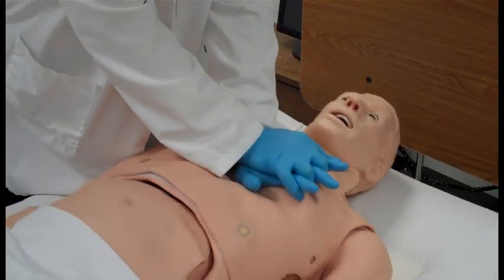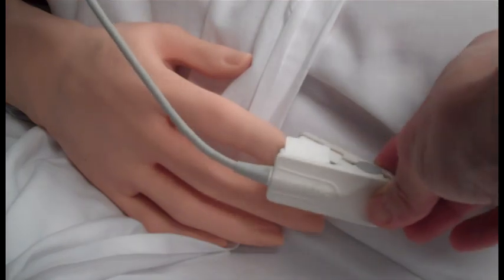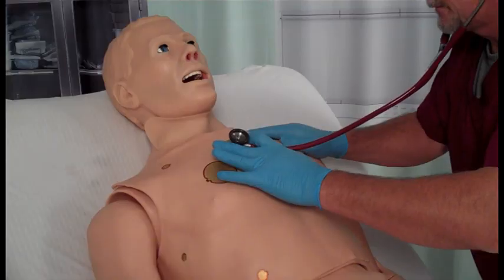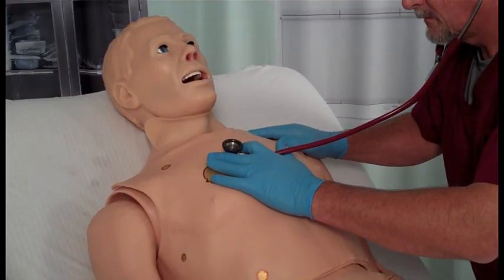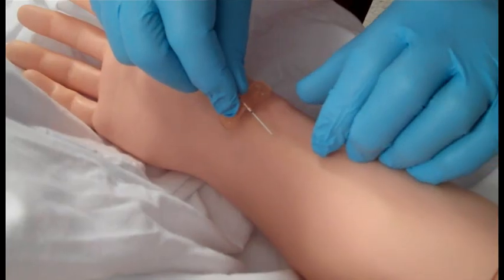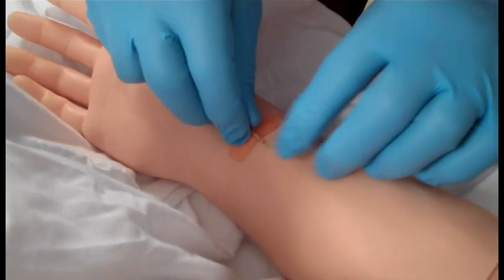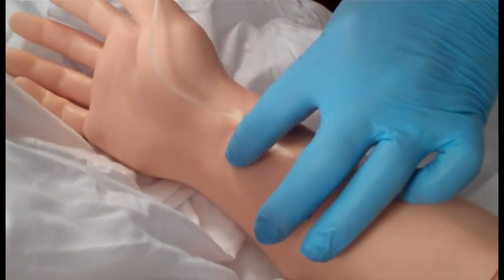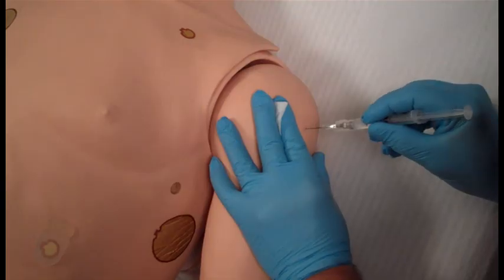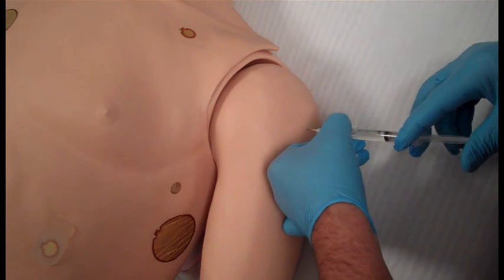Hal can also handle normal CPR procedures and has bilateral O2 saturation sites on index fingers. Hal is equipped with several realistic heart sounds which are related to the user-defined heart rate and cardiac rhythm. IV, IM, or sub-Q access can be performed using only needle sets size 22 or thinner to extend the life of the veins and skin. Sites on the upper left and right arms and legs permit IM injections where fluids are actually administered.